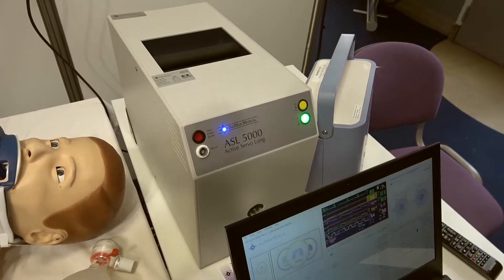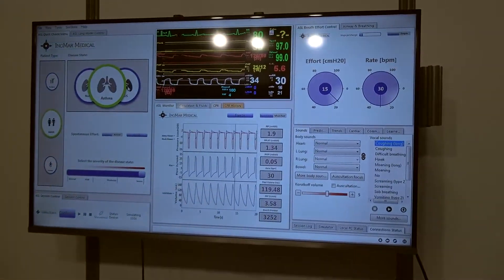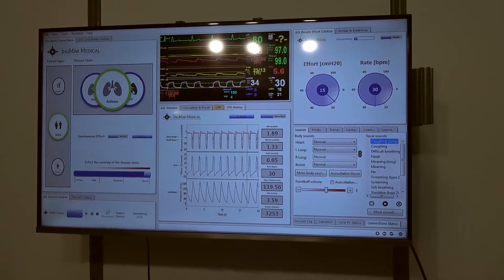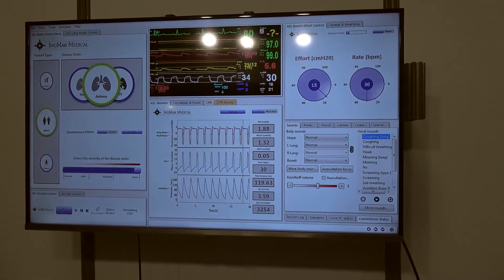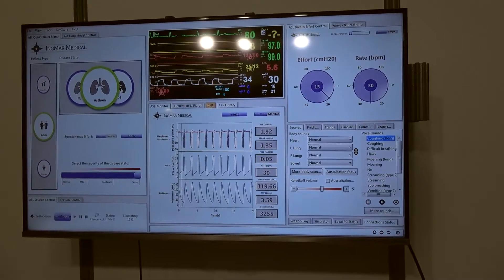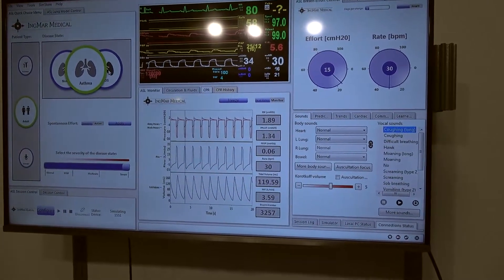We are connecting our breathing simulator to the SimMan in order to provide more realistic lungs and breathing patterns that can be used for ventilator management training. This means you can connect any real ventilator on any mode of ventilation to the SimMan to conduct ventilator management training.